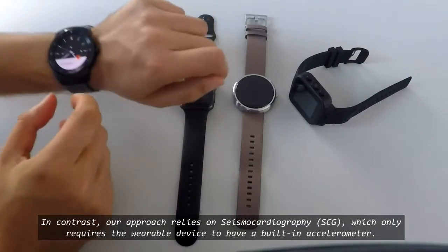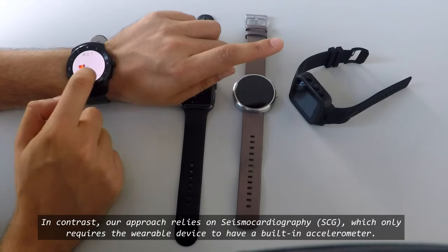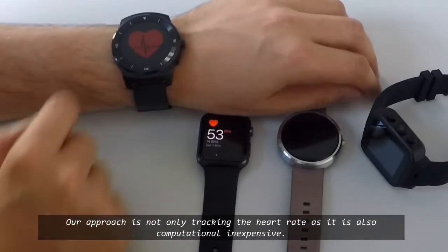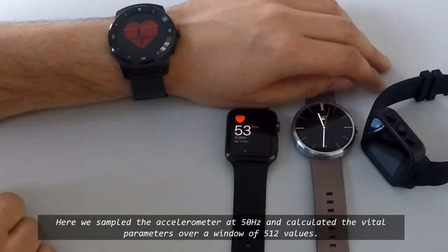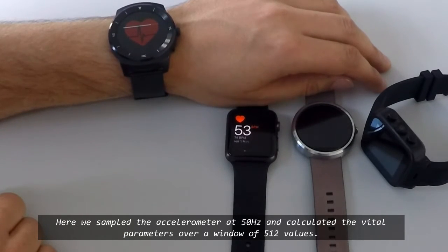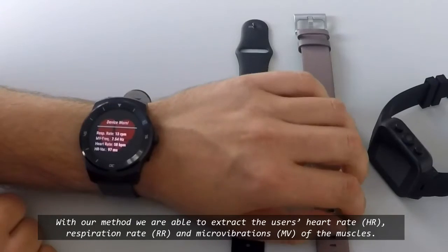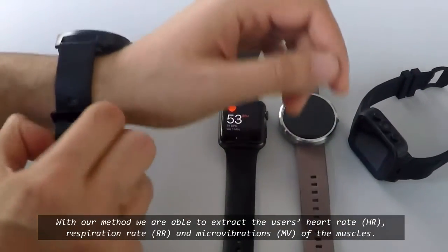In contrast, our approach relies on seismocardiography, which only requires the wearable device to have a built-in accelerometer. Our approach is not only tracking the heart rate, it is also computationally inexpensive. We sampled the accelerometer at 50 Hz and calculated the vital parameters over a window of 512 values. With our method we are able to extract the user's heart rate, respiration rate, and micro-vibrations of the muscles.